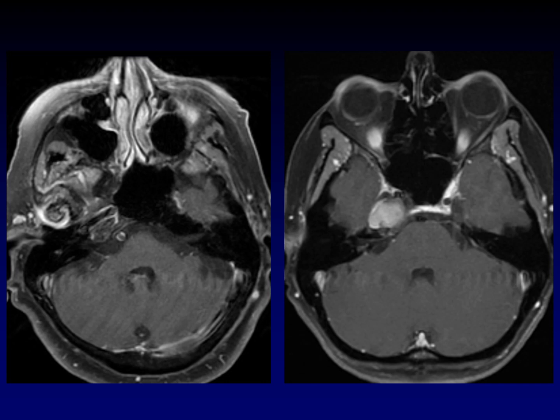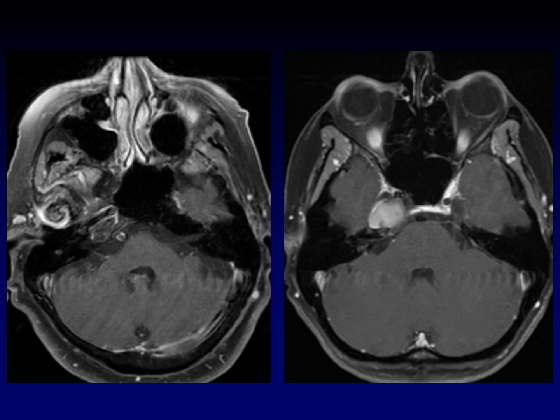Maybe some other sequences would help. Here is a fat-suppressed post-contrast image on those same two patients. You may want to pause again and see if this helps you narrow down your differentials. Now, what do you think?